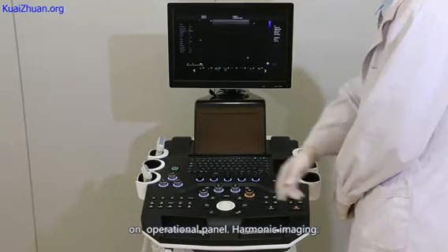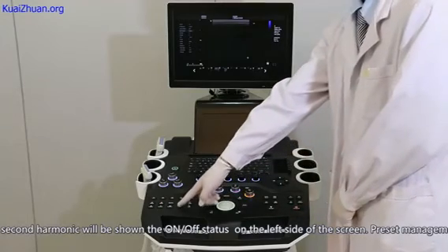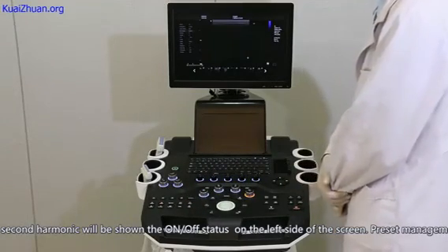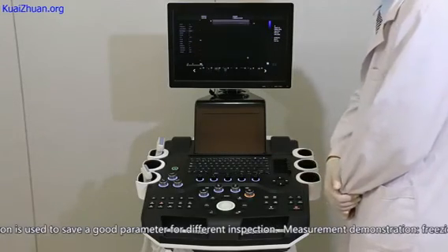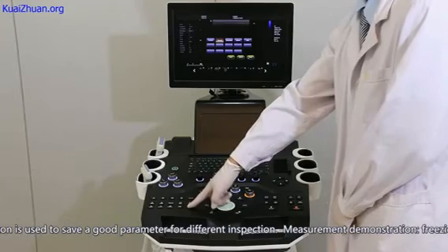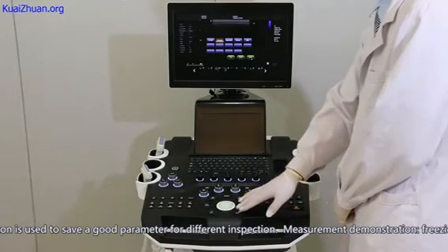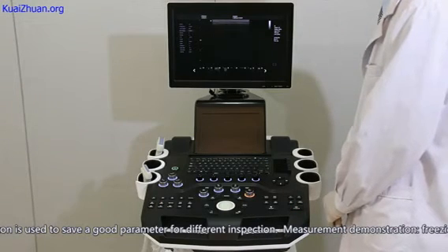Harmonic imaging. The second harmonic will be shown with its on and off status on the left side of the screen. Preset management. This button is used to save a good parameter set for different inspection parts. Measurement demonstration. Freeze the image.